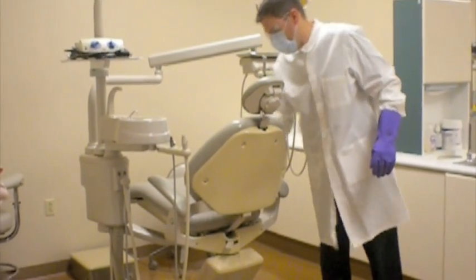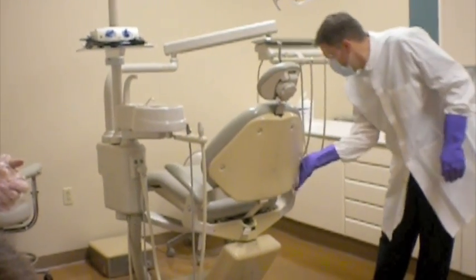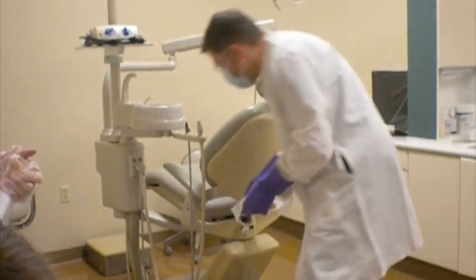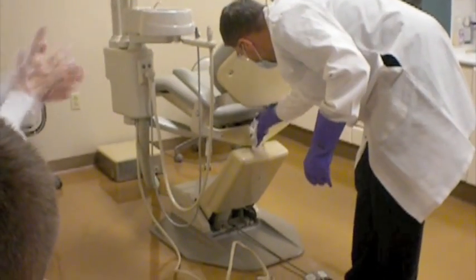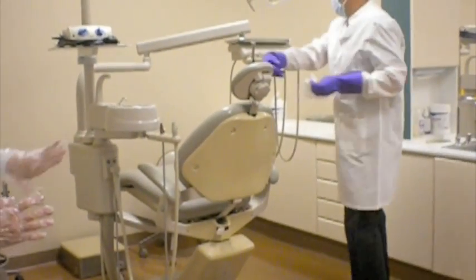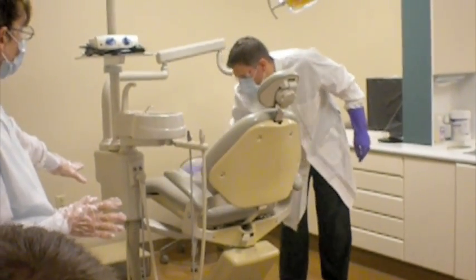So now that where the patient rests will be wiped, the arms will be wiped, the top, underneath, the sides, the outside, the inside, and then he'll come around to the back of the chair and he'll wipe what we call the yoke of the chair and the lever that swivels the chair back and forth. When he's done with that, long sweeping motion from the back of the chair up to the plastic covering on the seat.